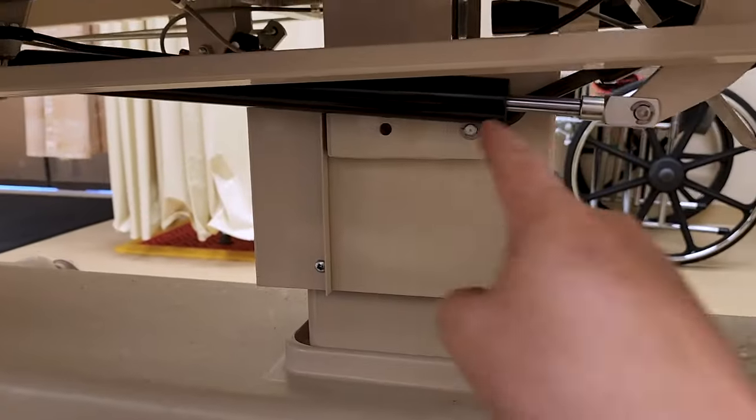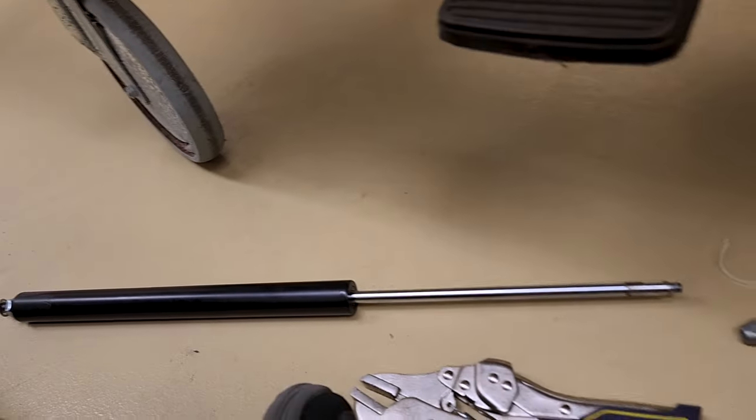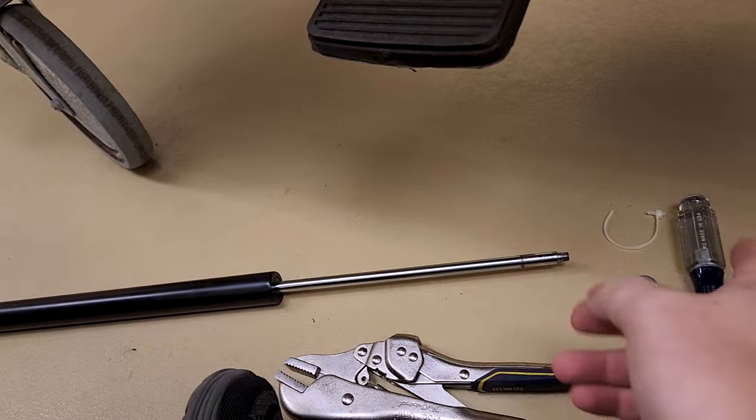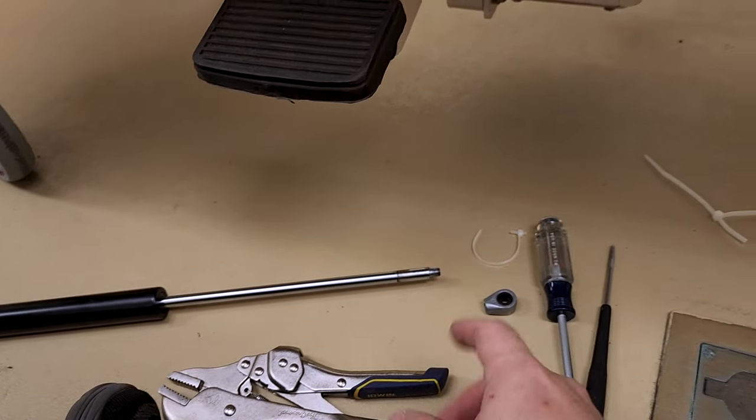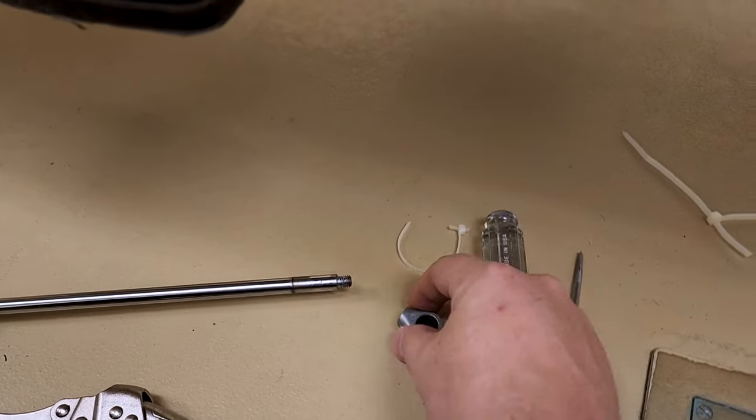All right, so here is a stretcher and I had a locking pneumatic cylinder that was defective. This is the old component. The valving is completely broken, so it springs up very violently and it almost launched my tool bag across the room when I first came out.